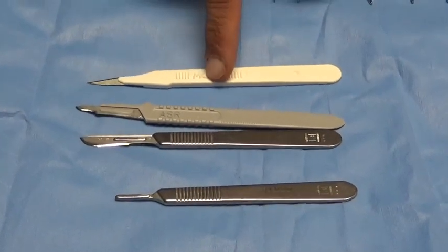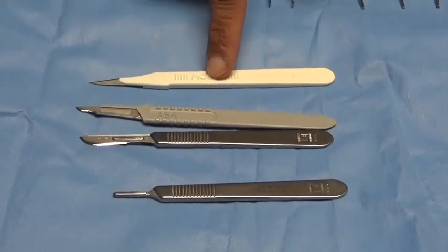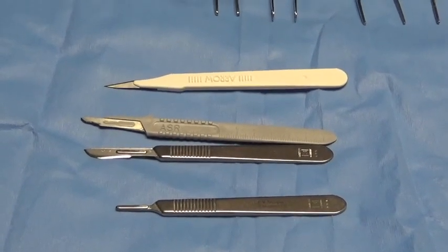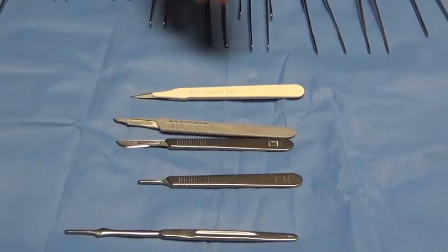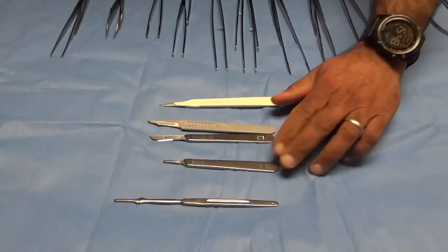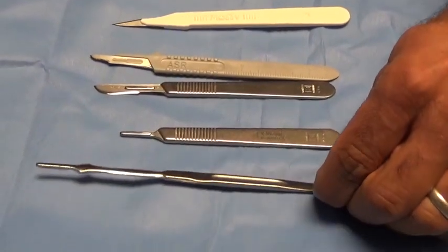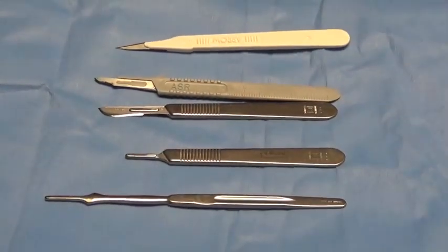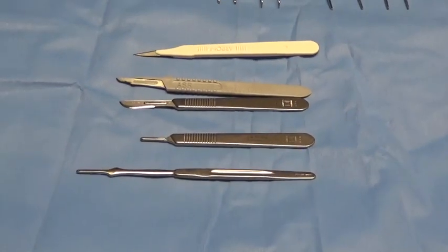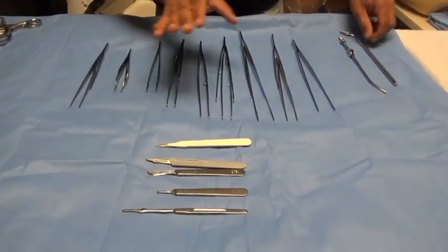It's virtually impossible to make a straight incision with a number 11 blade. In the cardiothoracic realm, number 11 blades are frequently used to make incisions in the vena cava or other cannulation incisions. They're designed for precision stabbing motion. The number three handles are short handles; for longer reach with blades, this is a number seven handle, and the number 10, 15, or 11 blades can be mounted to a number seven handle as well, depending on where anatomically you need to go in the body.